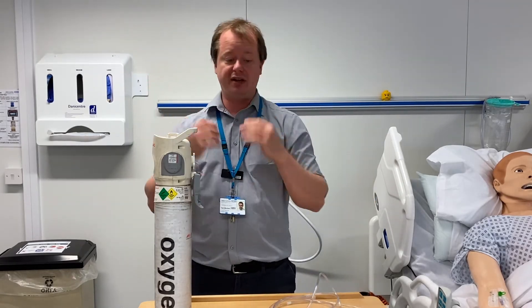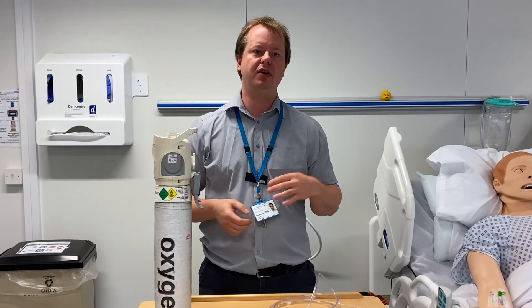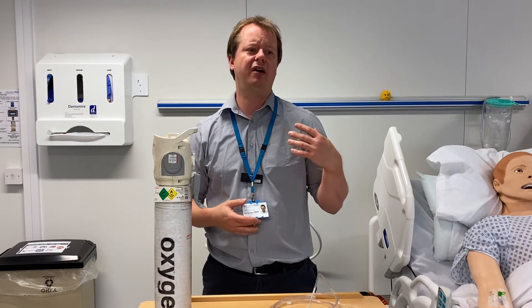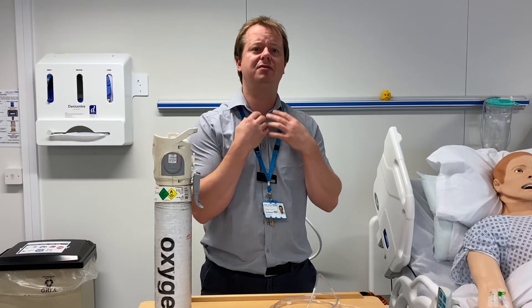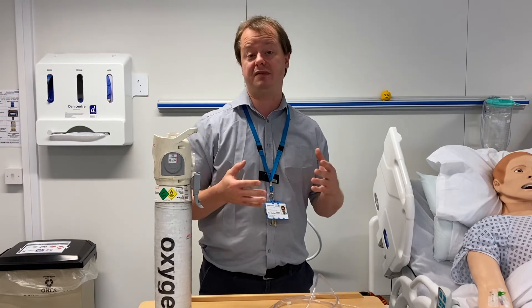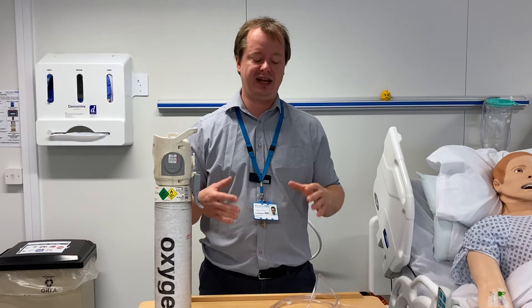It's important to know that when you're giving oxygen from a cylinder or from the wall, it is absolutely dry — there is no moisture in it. This means it can dry out the nose, mouth, and membranes, and can dry out any sputum the patient is trying to cough out, making it very hard to clear. So if you are giving someone long-term or high-flow oxygen, it's important to explore the possibility of having it humidified, though this has been very difficult during COVID times.